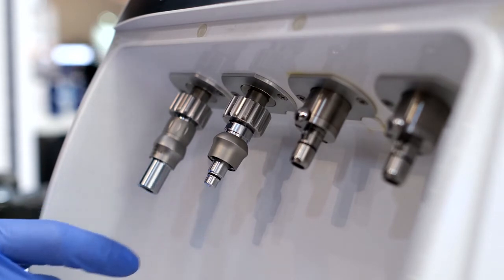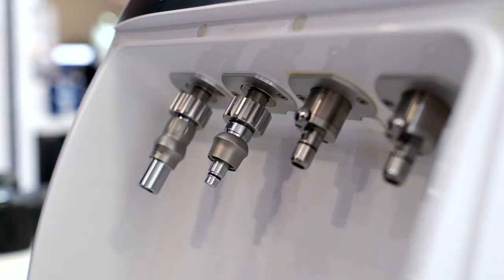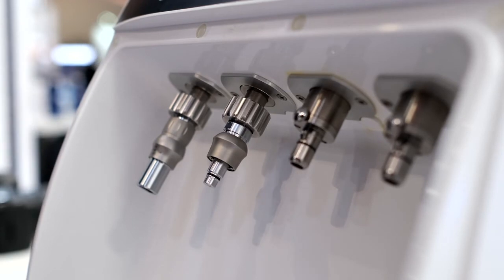Deteriorated o-rings can result in excess oil flow from the connector into the handpiece, so it is important to check these fittings regularly.